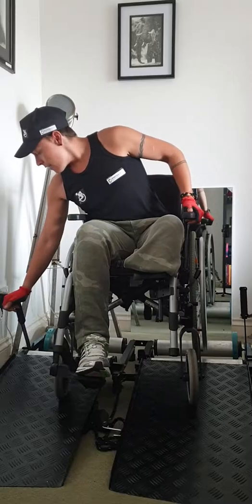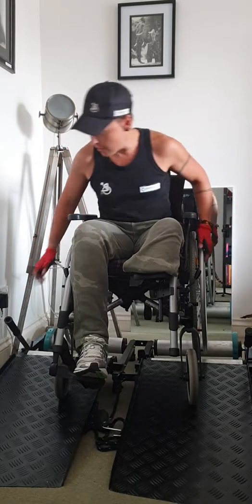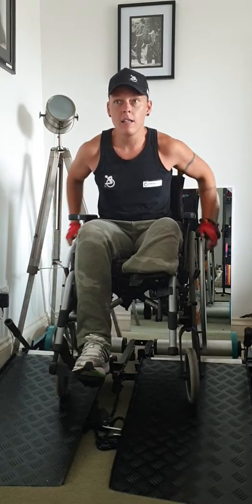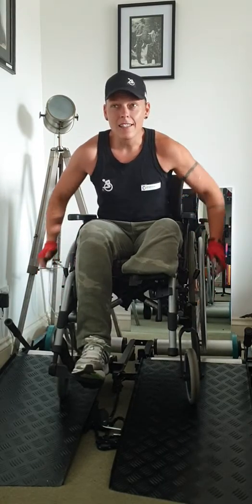So let's get going. All we do is take off the brakes. My brakes on my chair are already gone so we're ready to go. So already pushing — or wheeling as I like to call it.